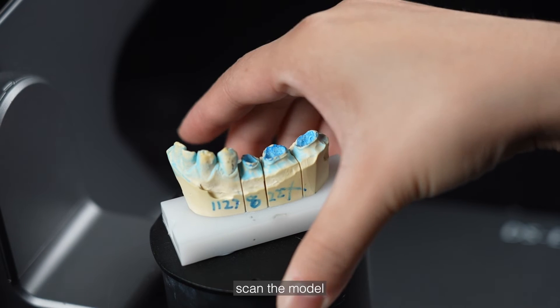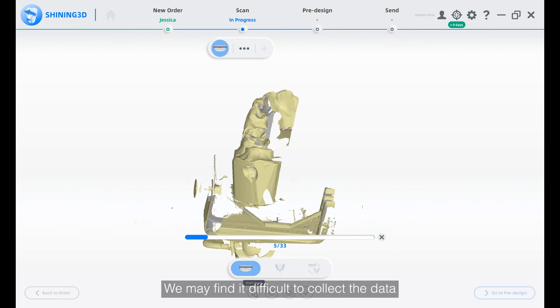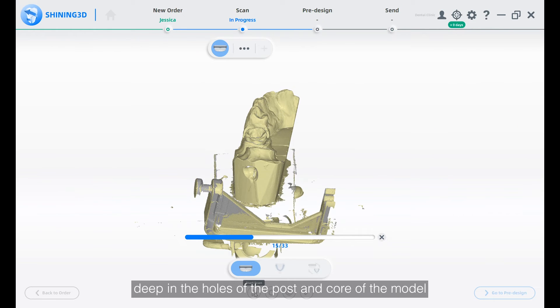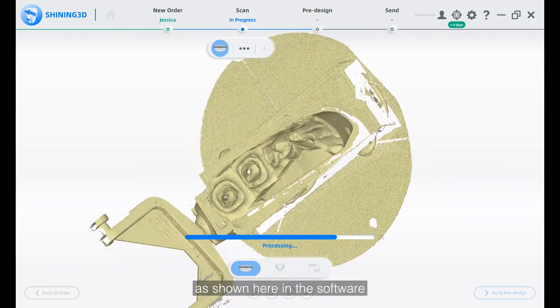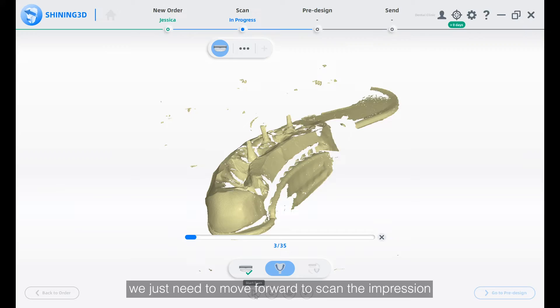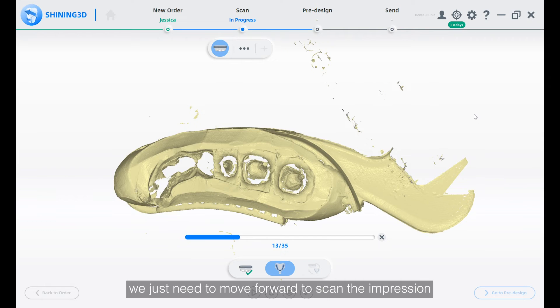First, scan the model. We may find it difficult to collect the data deep in the holes of the post and core of the model, as shown here in the software. But don't worry — we just need to move forward to scan the impression.